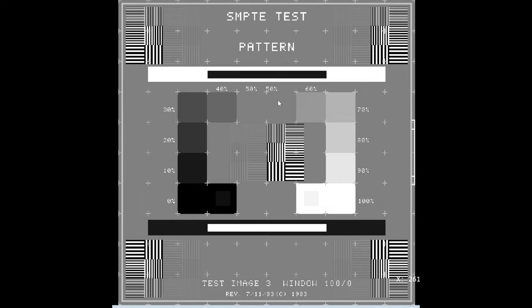Obviously, the two 50% patches will look the same. So as long as you can see each of the different steps, then you can pass that portion.